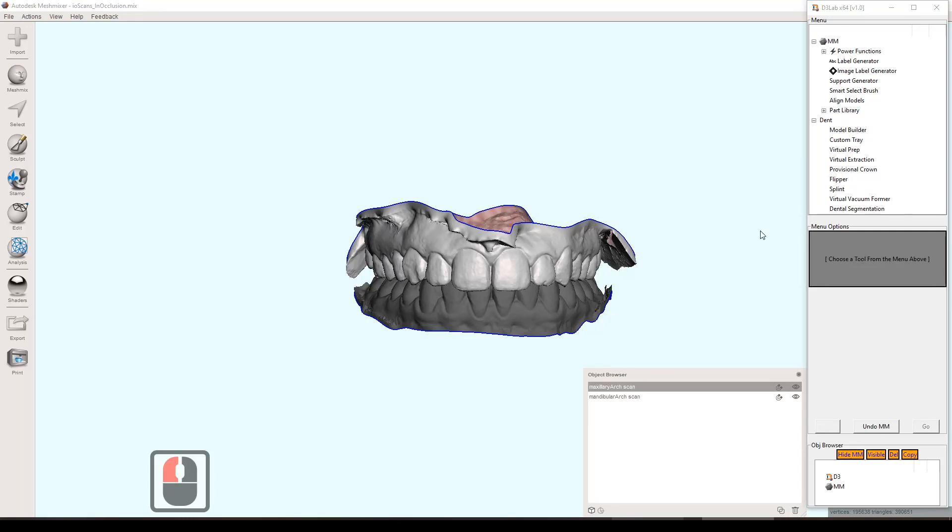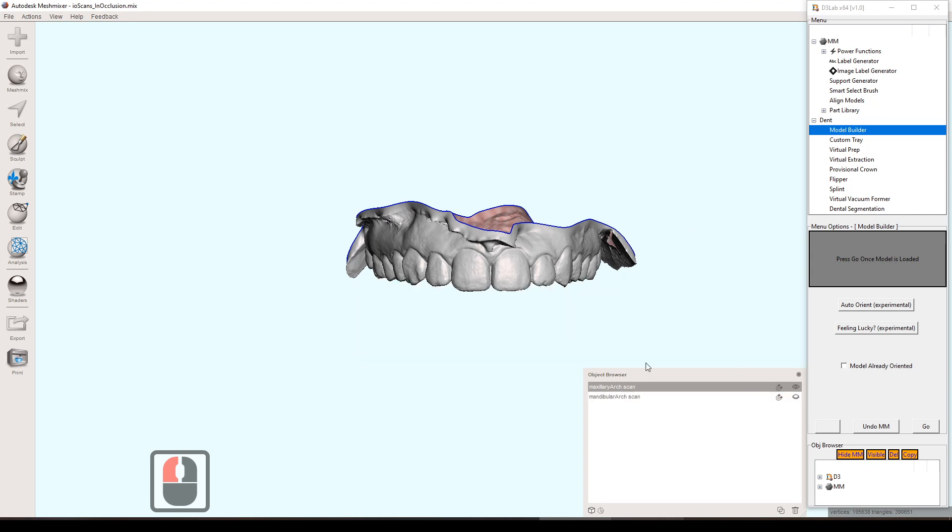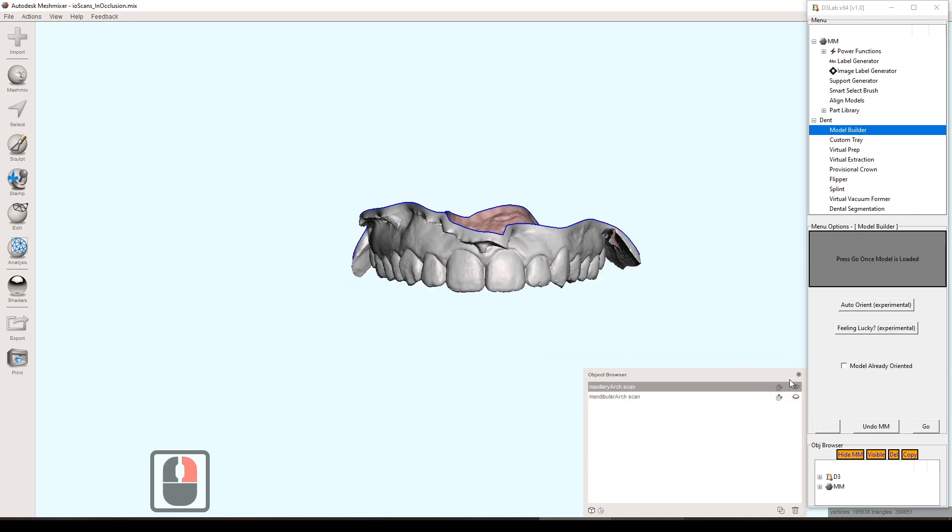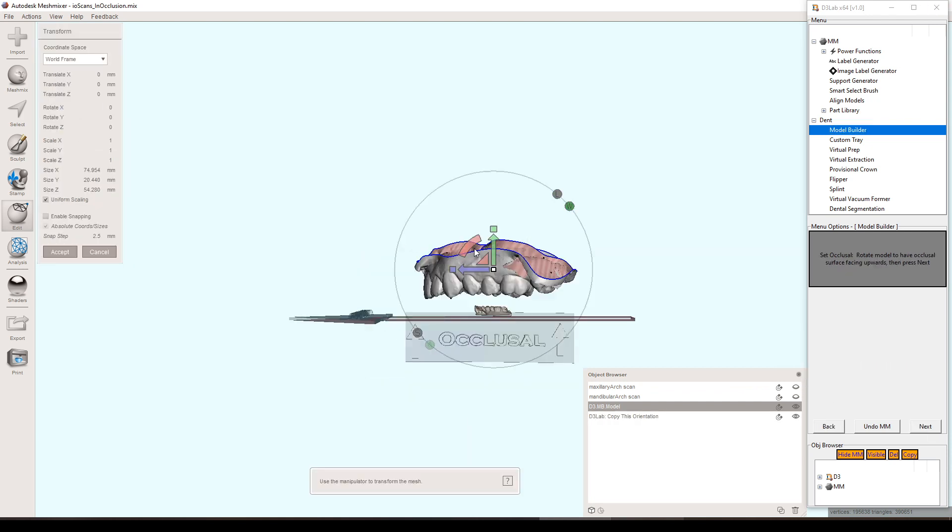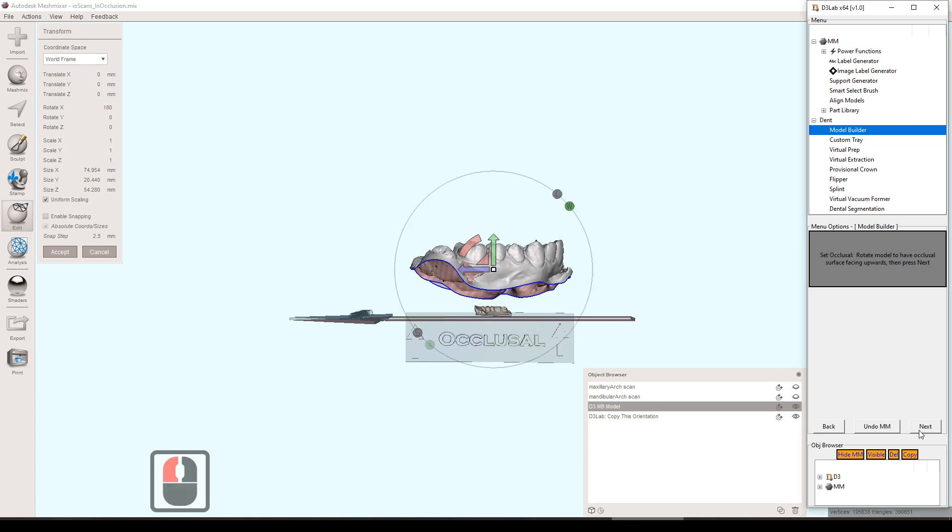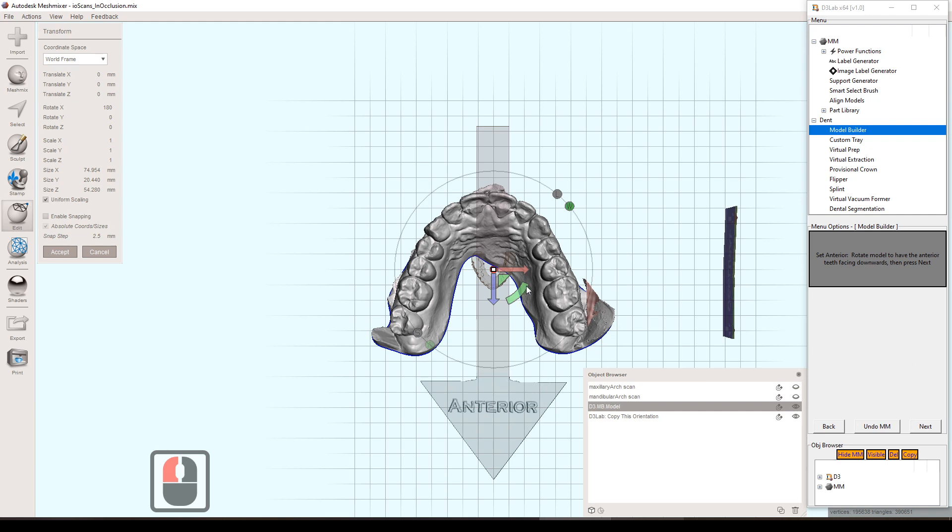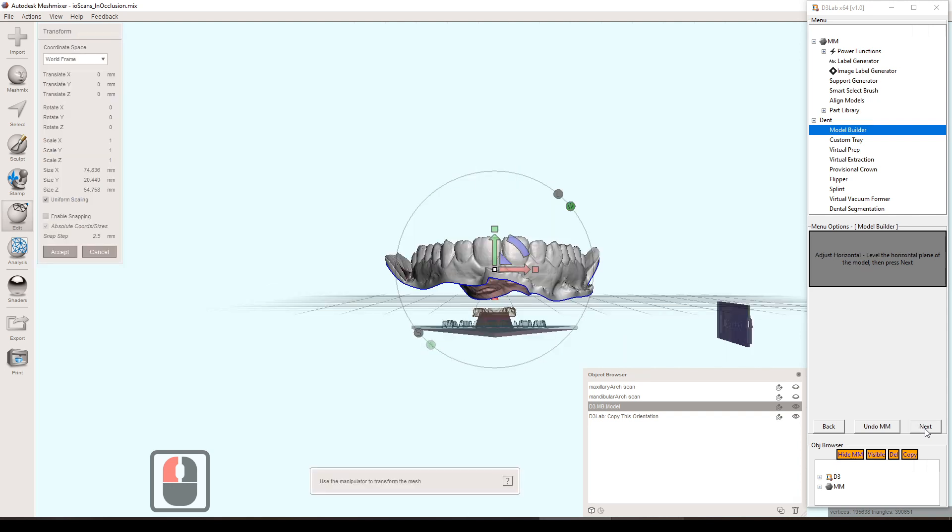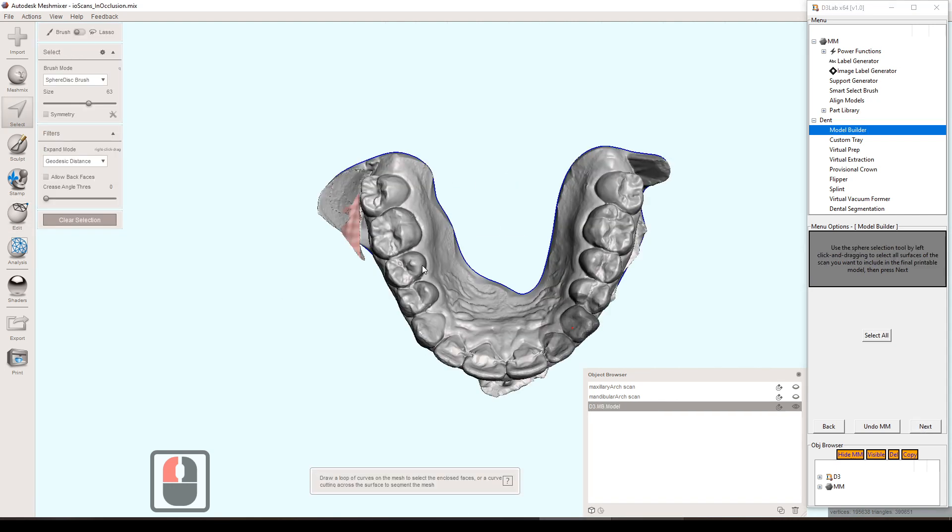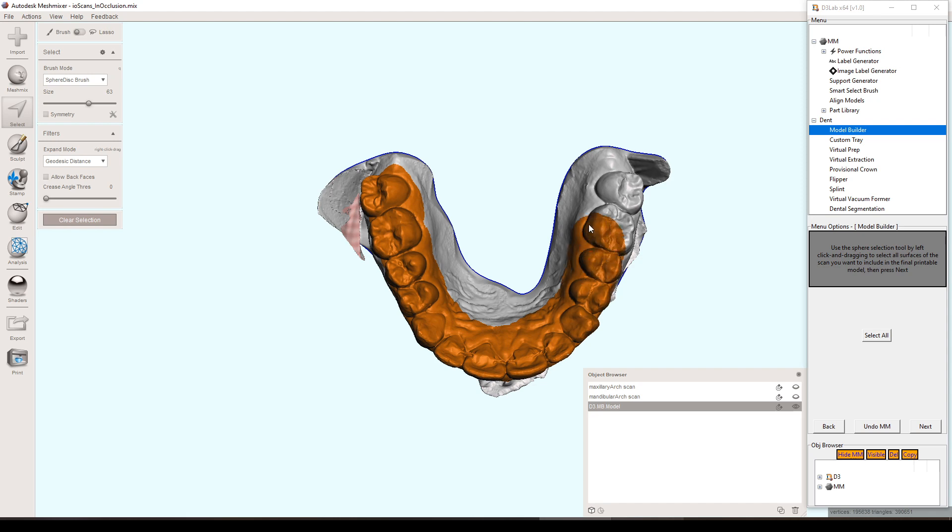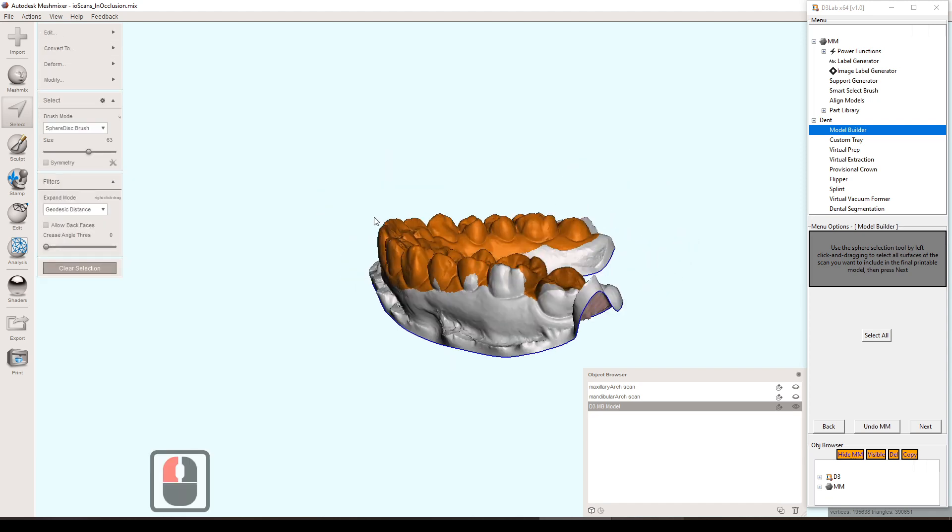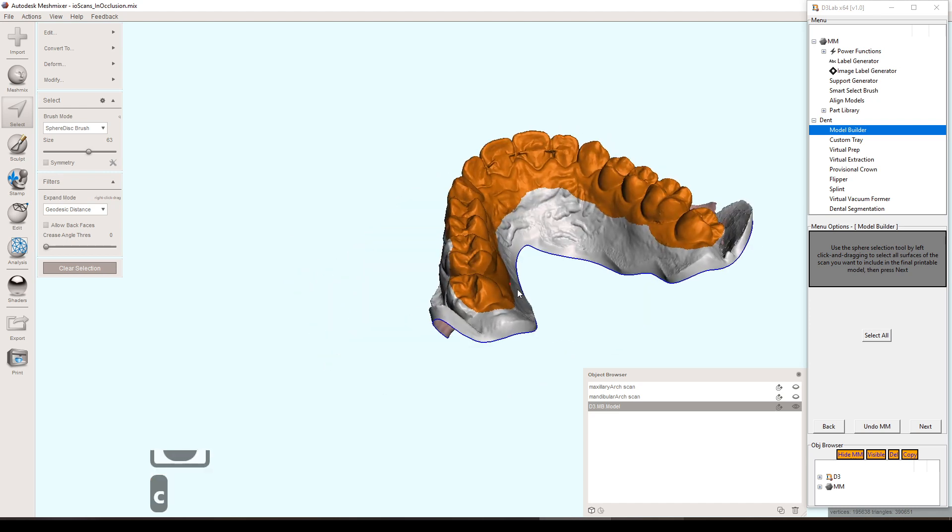What I mentioned in the first video is that you can generate all those end products with just these two input scans. Generally speaking, where you want to start is basing a model. So we'll start with the model building tool here, and there's a couple new options that you can see right there, but I didn't go over them in this video. I will at a later date, but it basically just allows you to do all the model building steps without any input whatsoever, and it just assumes that you have everything lined up properly and everything selected properly. Sometimes that's the case. Sometimes you just get really good scans and you don't need to do these steps of selecting and removing the extra, and it's just nice just to hit that button and just get a model.